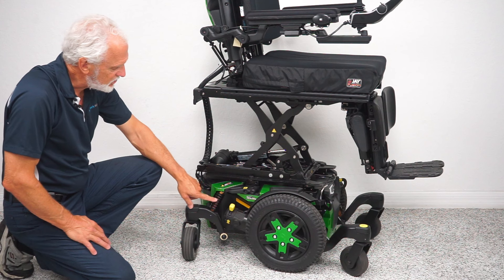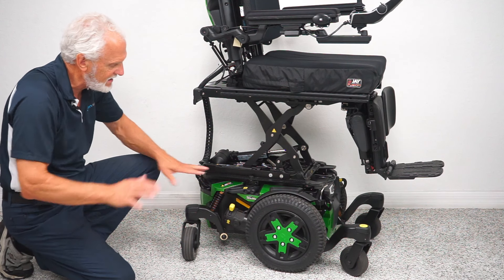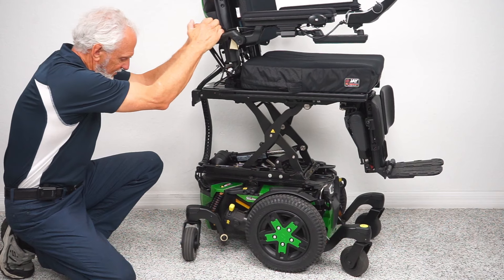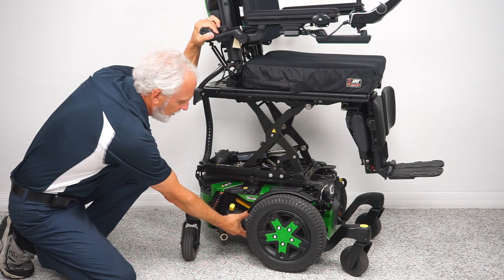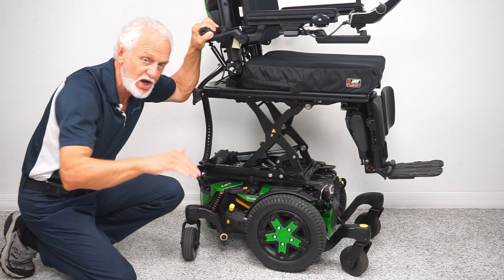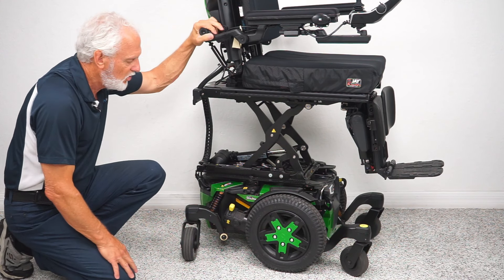You have four suspension points around the chair — each fork has independent suspension. If I pull down you'll see that fork right there. The chair is heavy so you can see the suspension working. You have a motor for each wheel; this motor goes directly to the hub — there's no chain, no belt, no noise, direct drive, no maintenance.